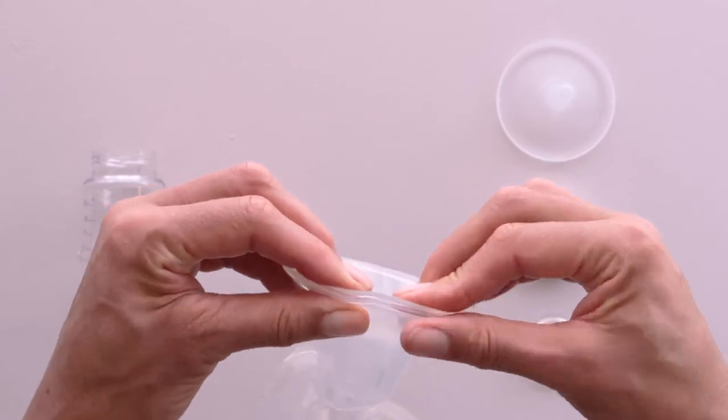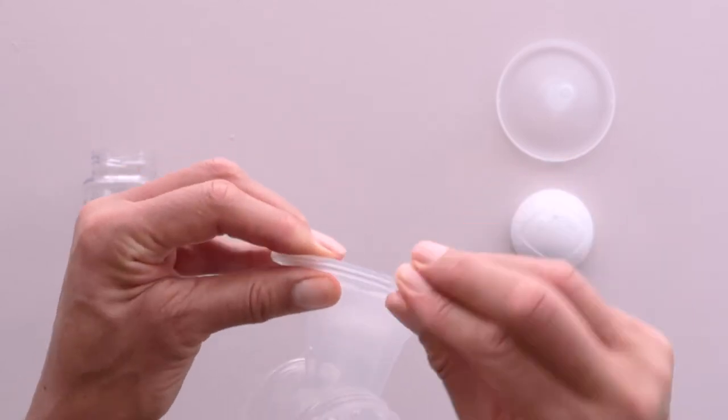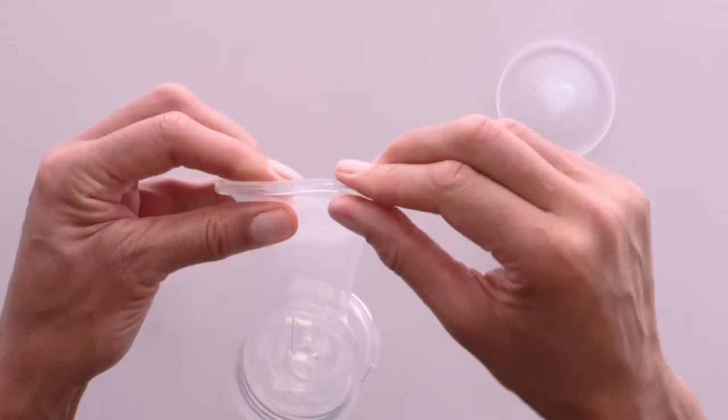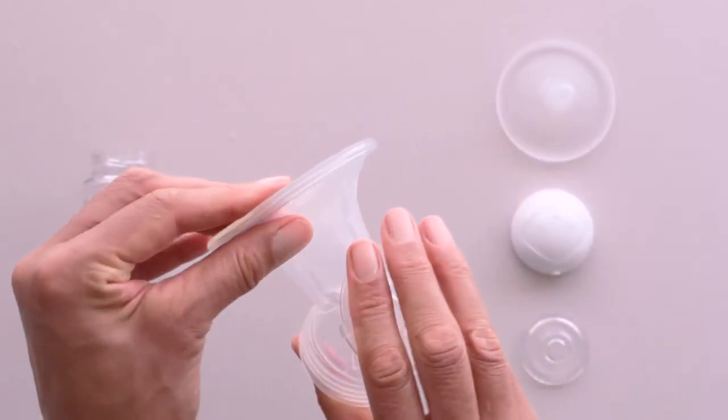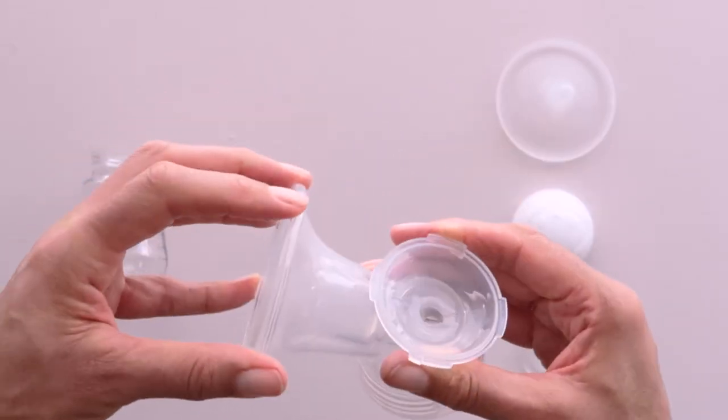Make sure the 3D cushion is flush with the body. Adjust the lip of the silicon cushion to ensure it fits snugly around the body.